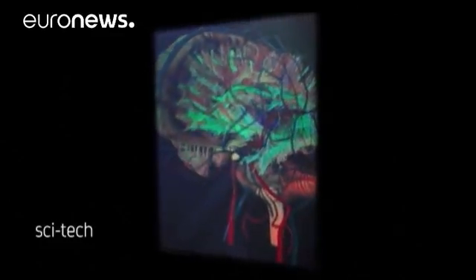The hologram is the next step forward from MRI scans, according to some doctors. Taking a walk inside your brain sounds like science fiction, but this hologram takes us a step closer.